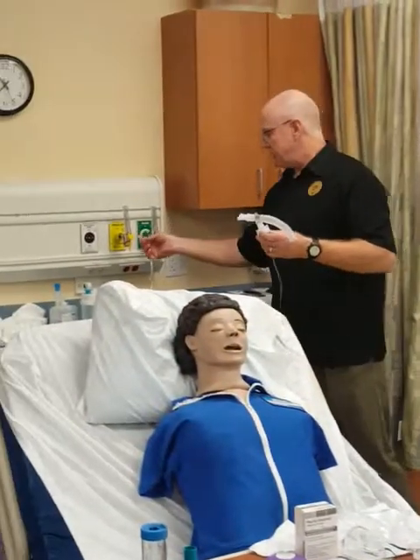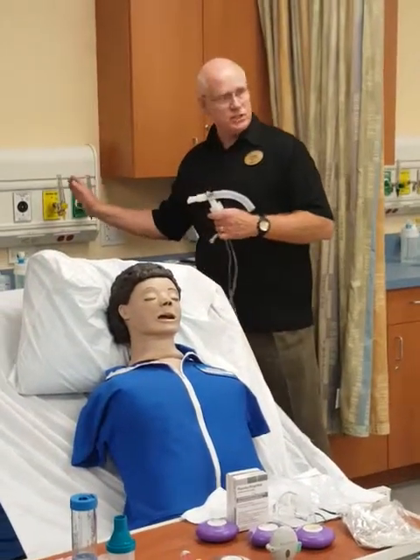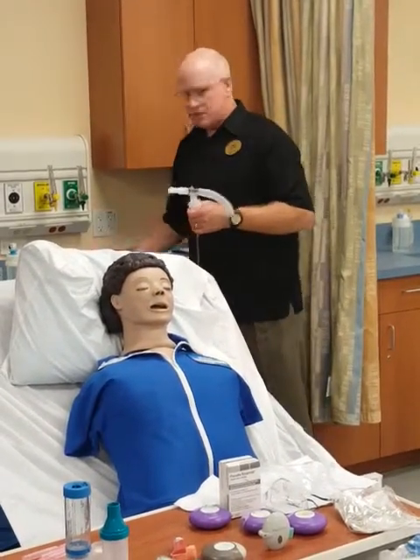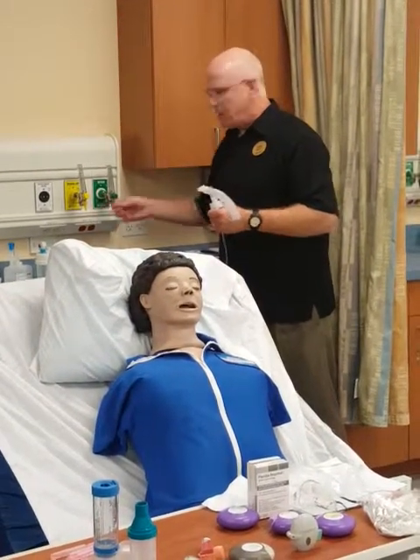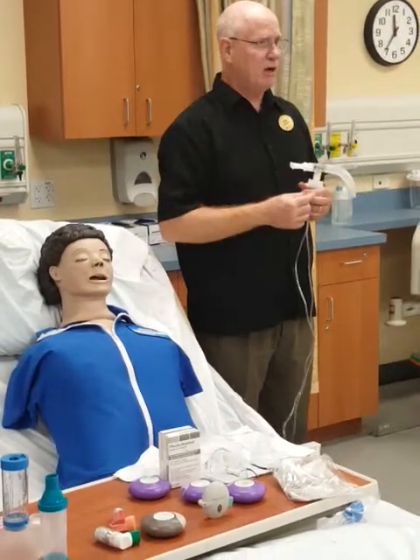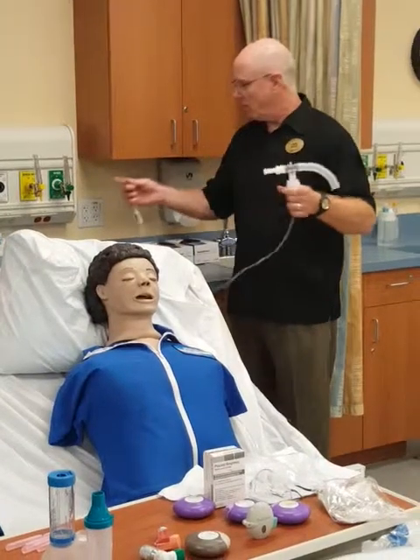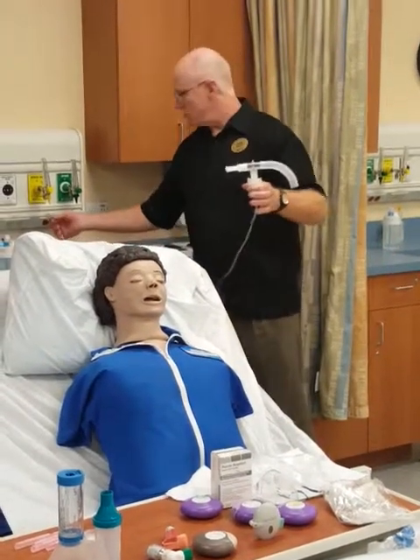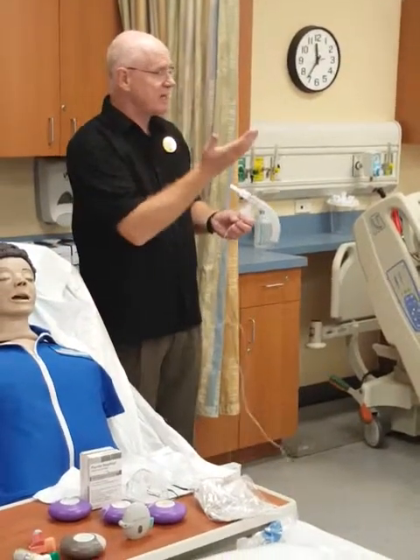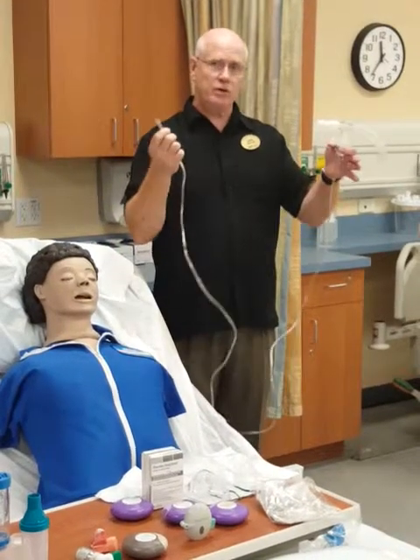You're going to connect this either to air or oxygen. Now, some hospitals don't have air outlets — they only have oxygen outlets. So sometimes you don't have a choice. If your patient is on a nasal cannula for oxygen, you don't need to take that off. If you have both flow meters and the oxygen cannula is hooked up, you can simply put it on the air and drive this medicine with air — because they're already getting oxygen. Cannula plus an air flow meter: drive it with air.